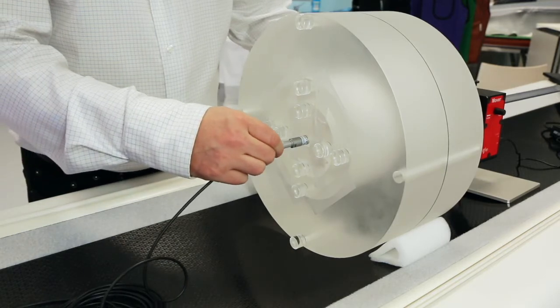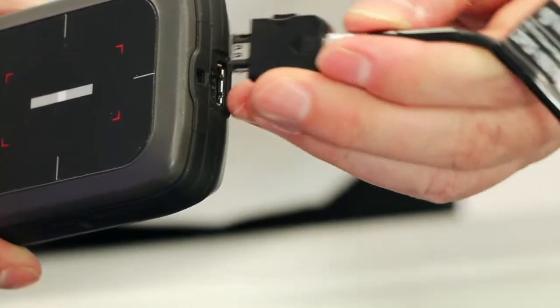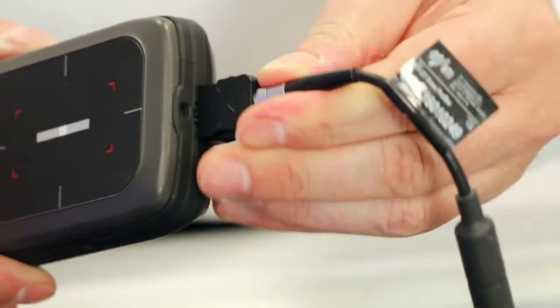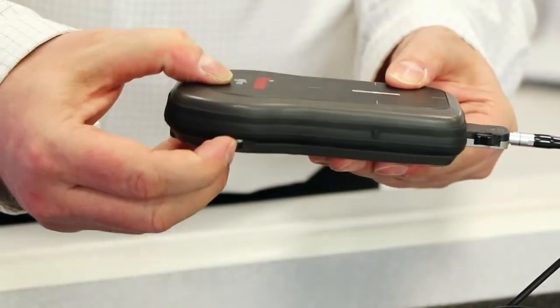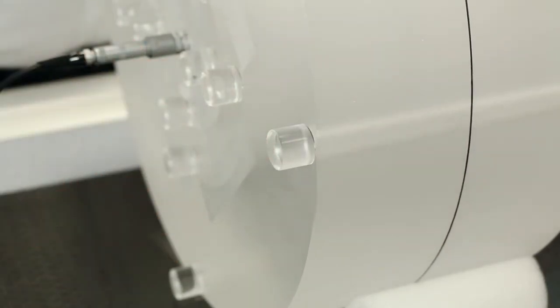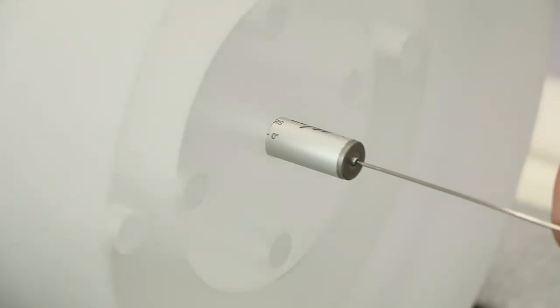Connect the cable to the CT dose profiler and the piranha and then turn it on. Put PMMA rods in all the other holes and position the active detector in the CT dose profiler at the very end of the phantom, close to the mover.